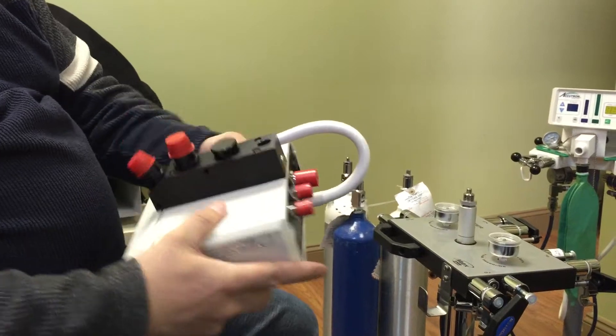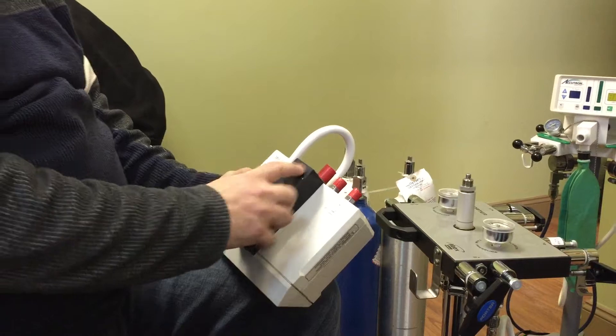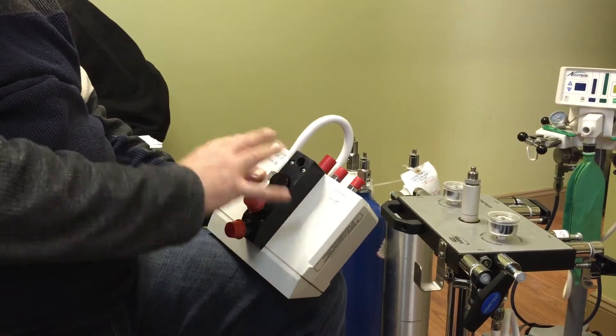On the bottom side here you have two caps. This is where this is going to screw on to the top here. While we're here, we're going to actually do a little walk around.